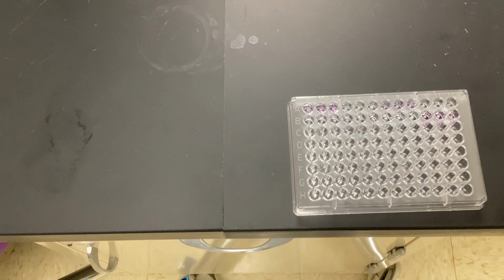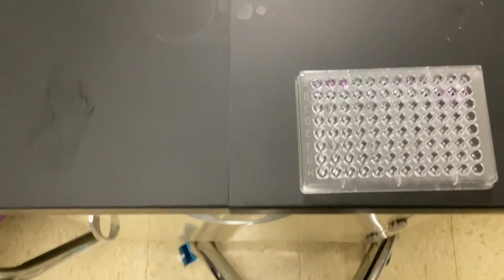So you don't have antibodies to it, or you could have been exposed recently. Just realize that to get your titers all the way up, it usually takes anywhere from a week to 2 weeks. Similar to this. All right, so I'm going to move this over.